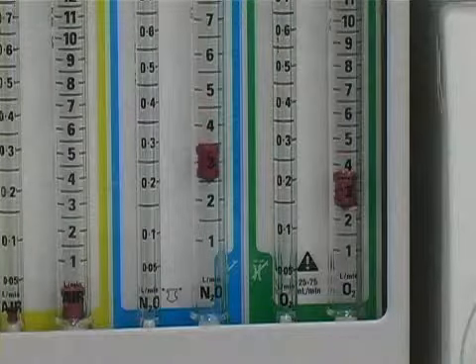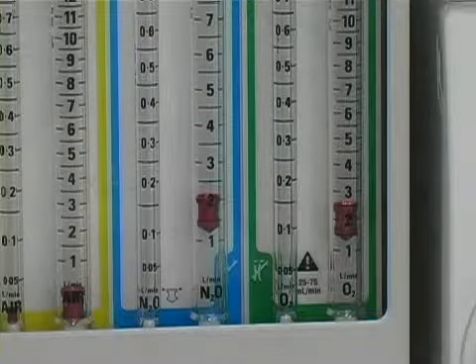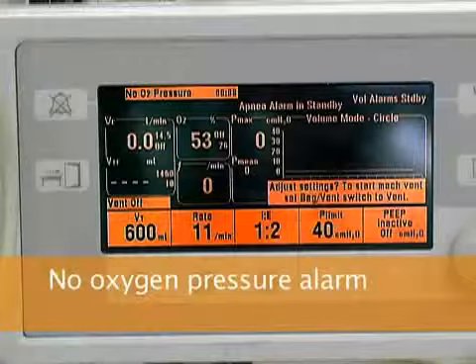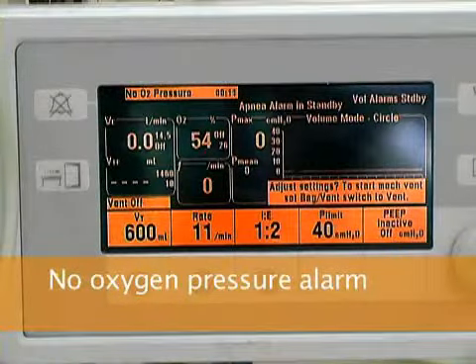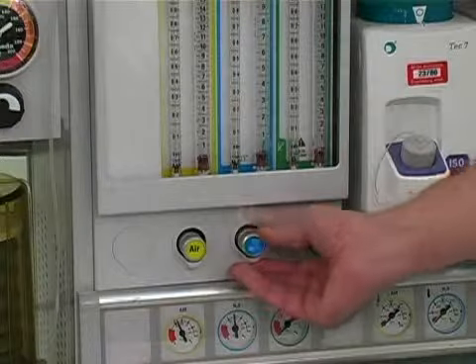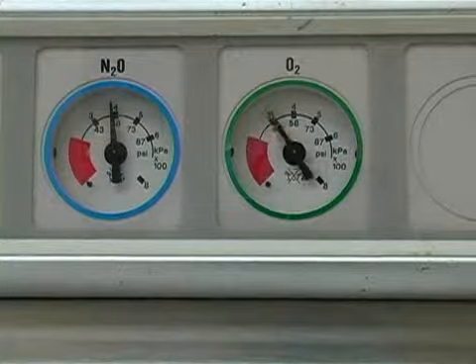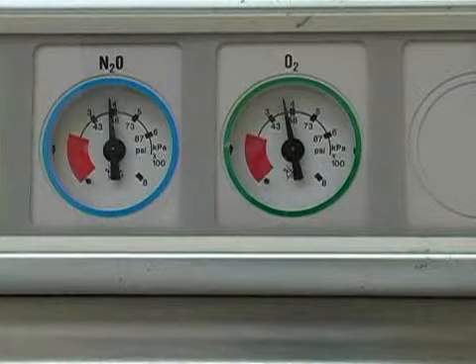When the oxygen pressure falls to 0, you should hear and see the no oxygen pressure alarm. Then set all gas flows to minimum and reconnect the central oxygen pipeline supply. Verify that the pipeline pressure gauge reads about 50 psi.